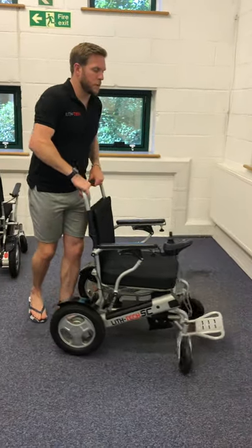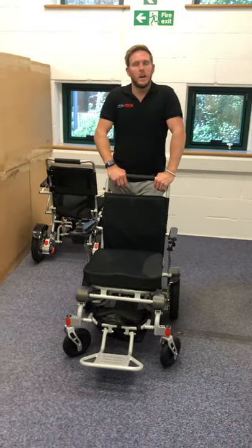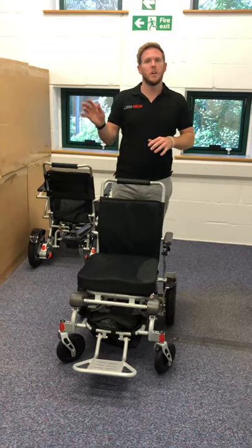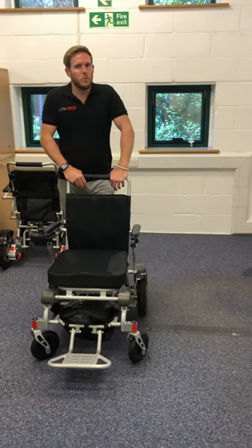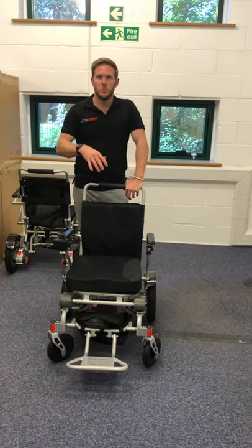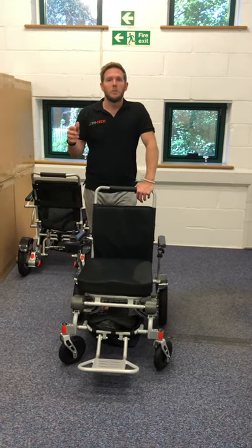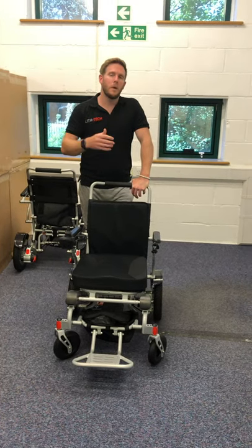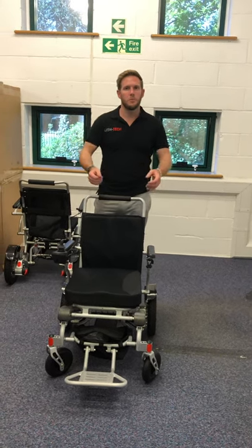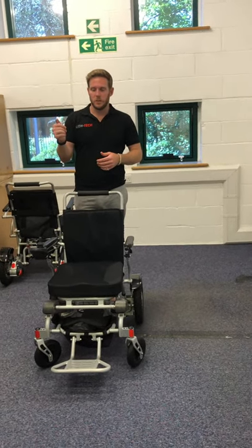The demographic this chair suits is people who want a really good indoor-outdoor chair, or who want to travel — these are two 6AH batteries, plain-safe for both batteries on every airline in the world. The chair folds up really small so most individuals can lift it solo, and couples can do a two-man lift; we have couples in their 80s who manage it. About one in every three customers who buy a smart chair also buys ramps — you simply freewheel it in a folded position up the ramps into your boot, or do it electrically with the joystick.